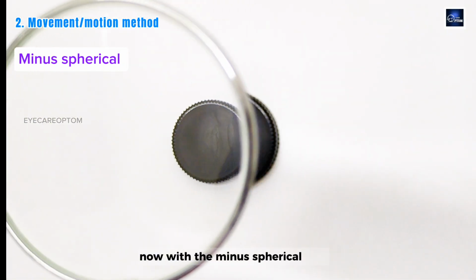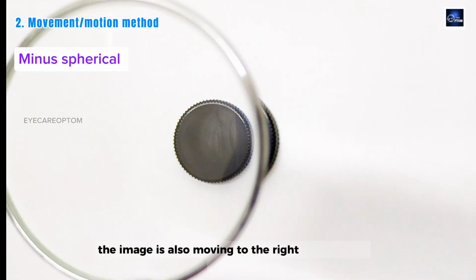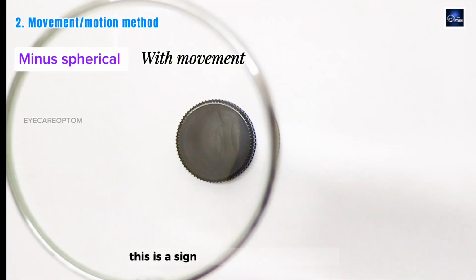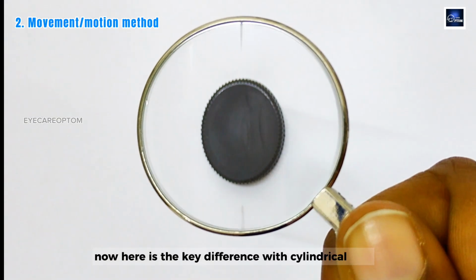Now with a minus spherical lens, if I move to the right, the image is also moving to the right, in the same direction. This is called with movement. This is the sign of minus spherical lenses. Now here is the key difference with a cylindrical lens.